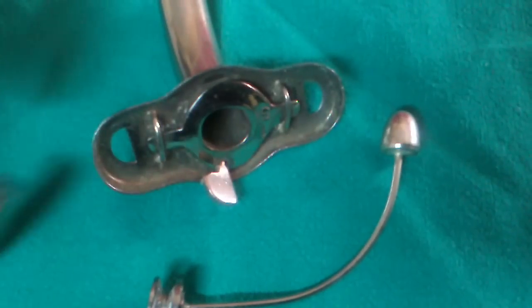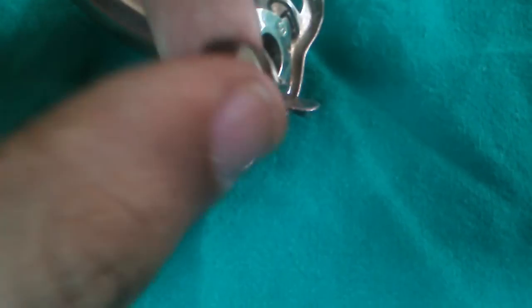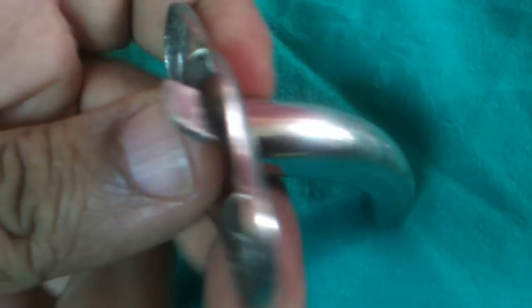After this has to be introduced by first inserting the introducer into the outer tube. It is then inserted into the tracheostoma.